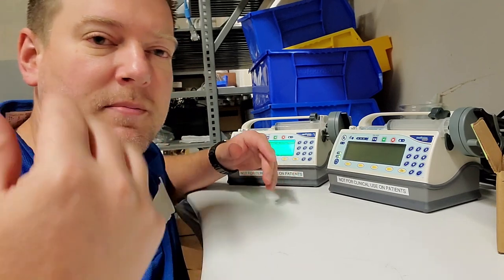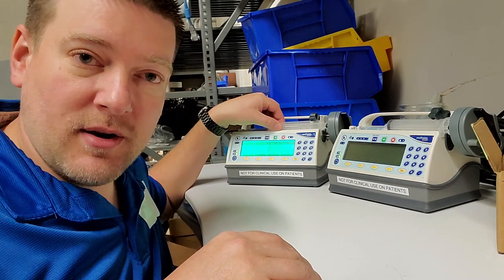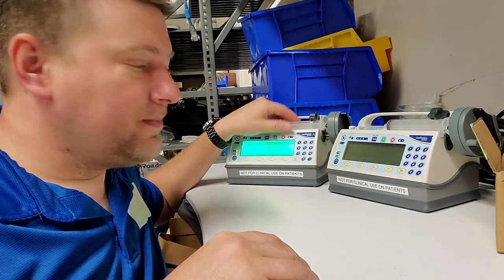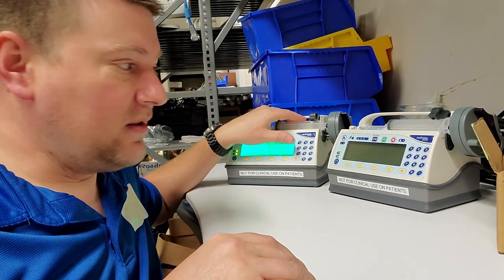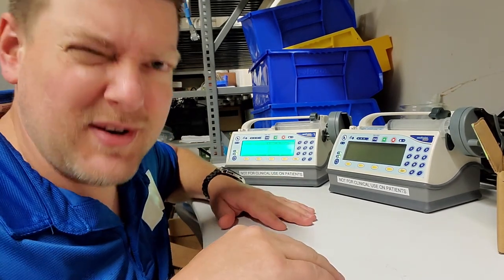Unlike feeding pumps and regular bag infusion pumps, these ones here take a syringe. So let's take a look at the overview of an infusion pump that uses syringes - a syringe pump.